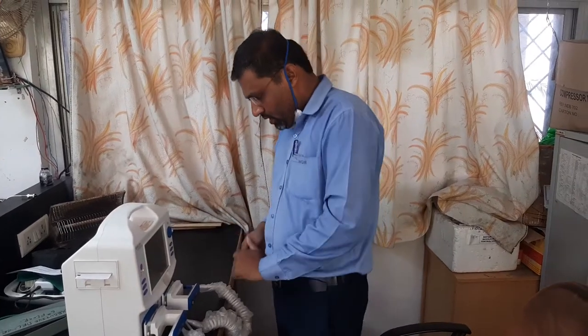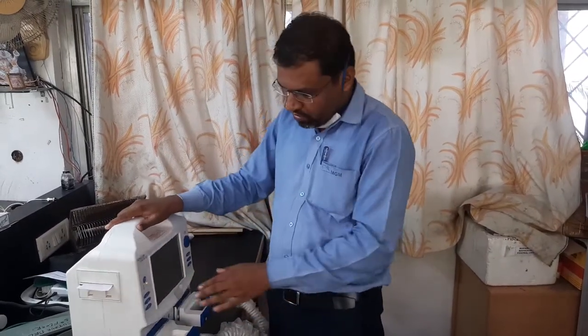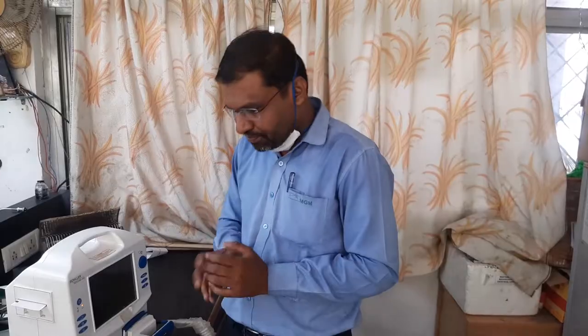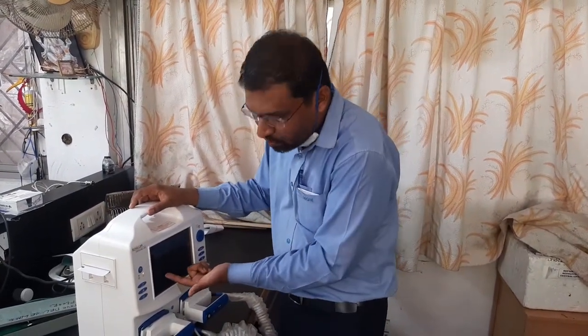In brief, key things to remember: your shock delivery pad should always be clean and properly stored. Before using the defibrillator, select the energy and deliver a test discharge — if it delivers properly, the machine is working. On a daily basis, check the machine, take one printout, and keep a register for the defibrillator checking protocol in your ICU or OT. The defibrillator should be on continuous charging so that at the time of emergency there is no battery issue.